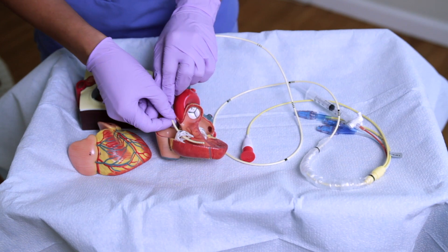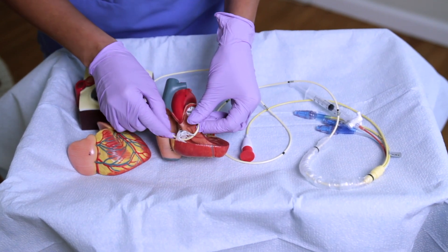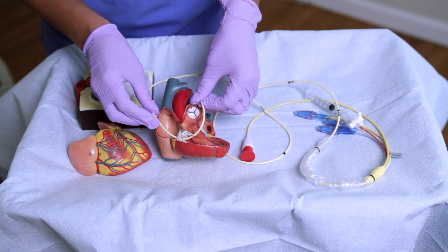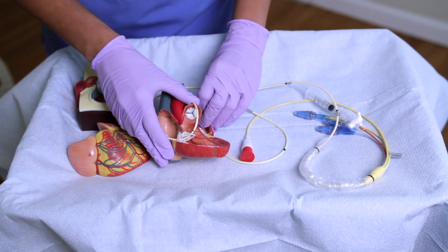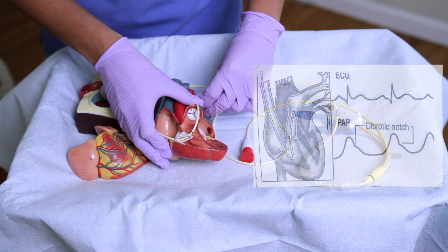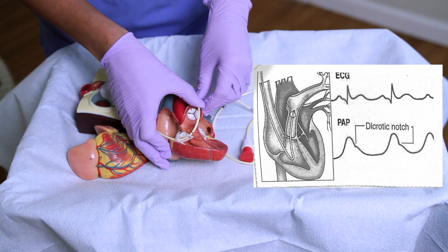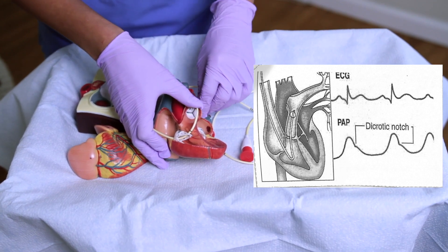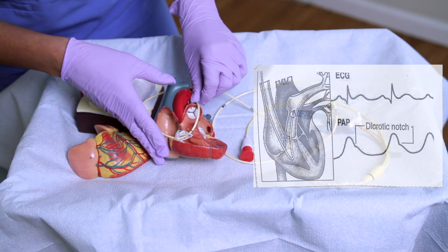As it continues to move forward, it's going to go through the pulmonic valve and then into the pulmonary artery. When it is in the pulmonary artery, you're going to see on the waveform a smoother upstroke, and then you will see this dicrotic notch, which is symbolic of the pulmonic valve closure.